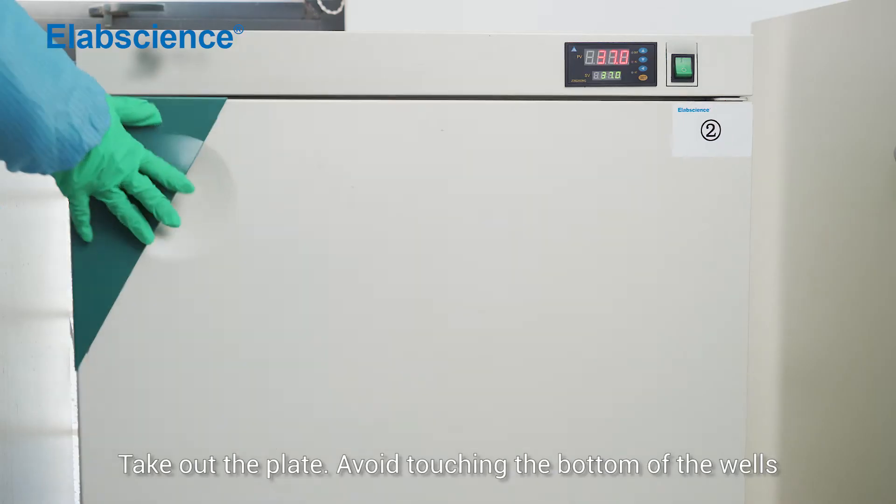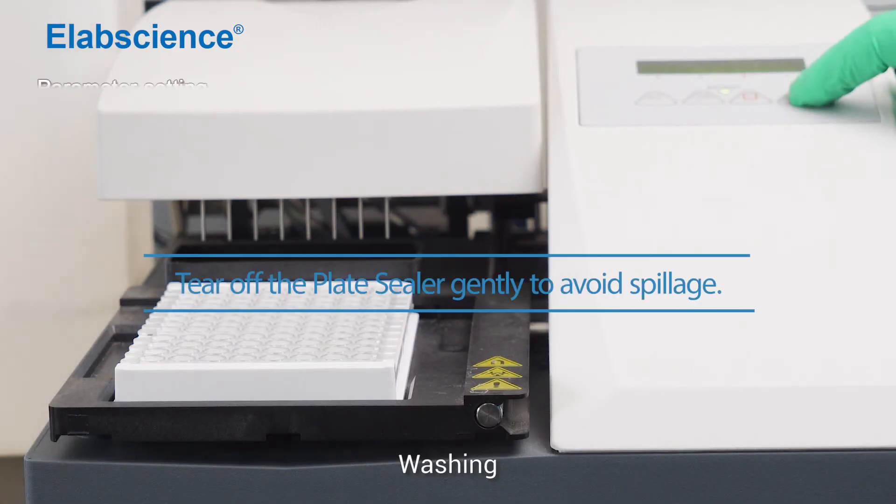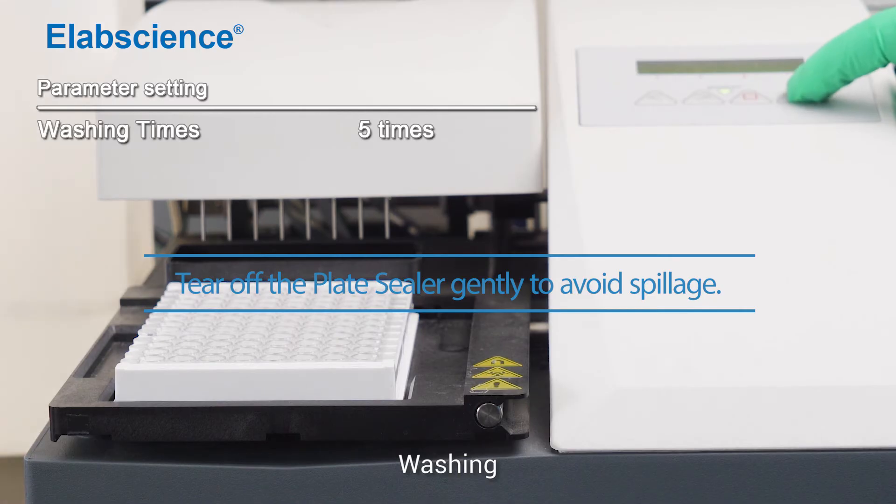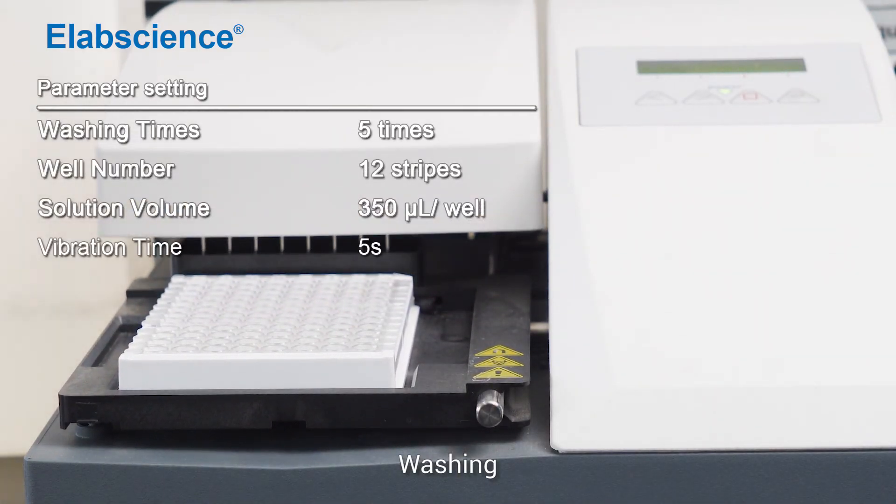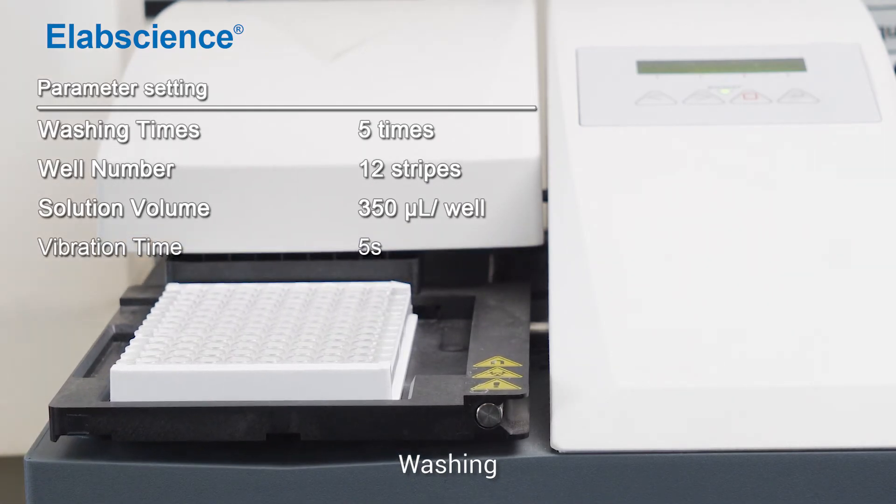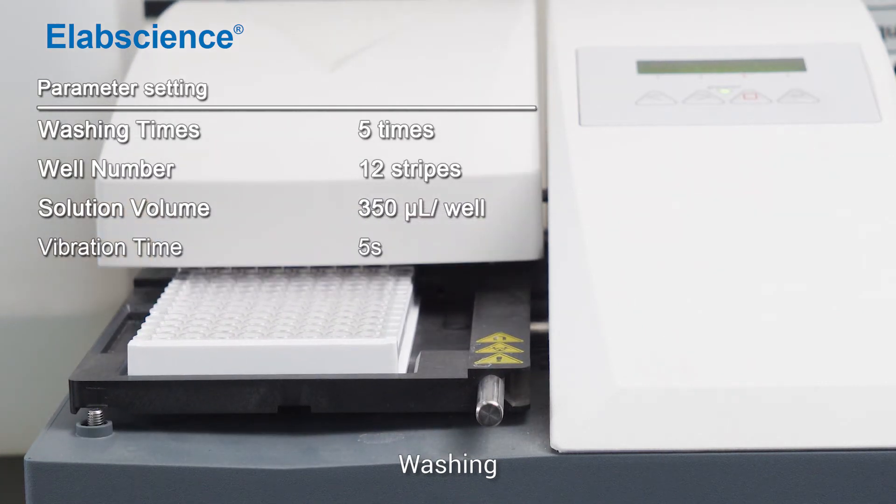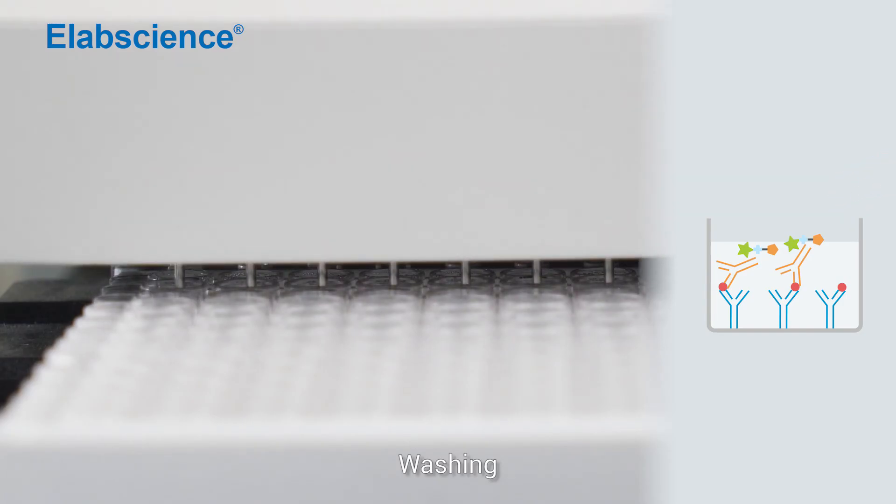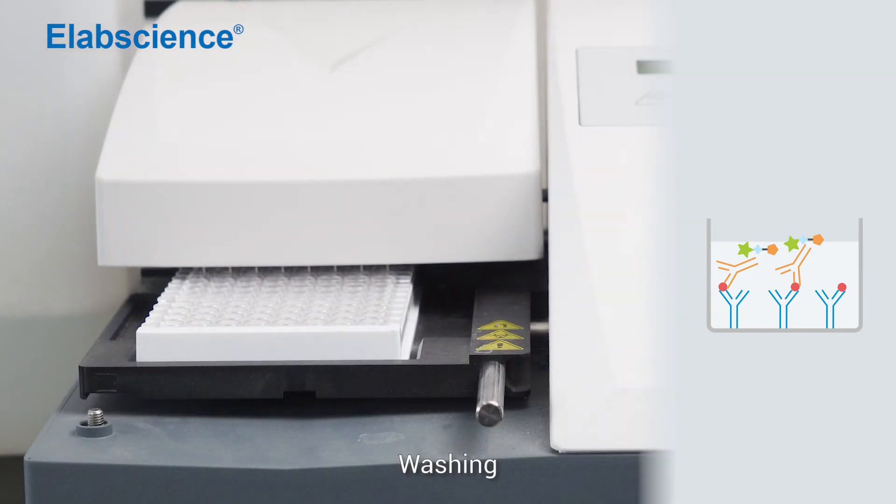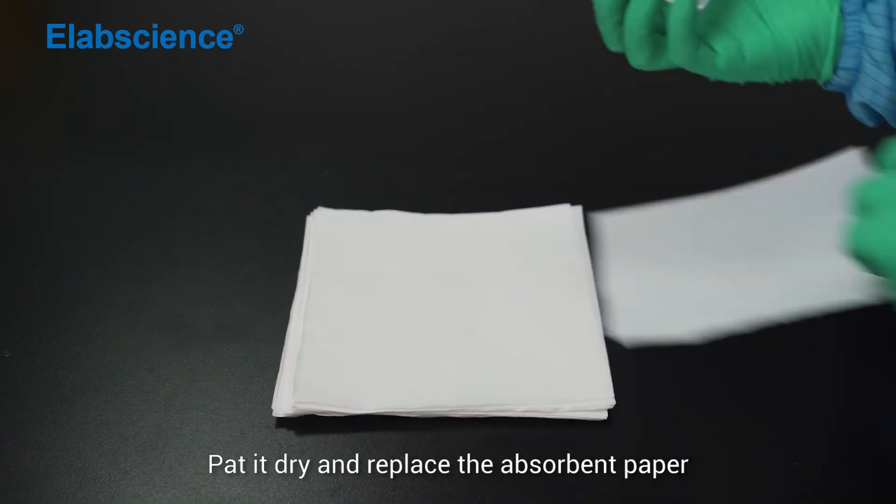Take out the plate, avoid touching the bottom of the wells. Wash and dry and replace the absorbent paper.